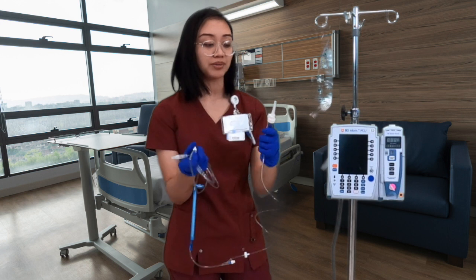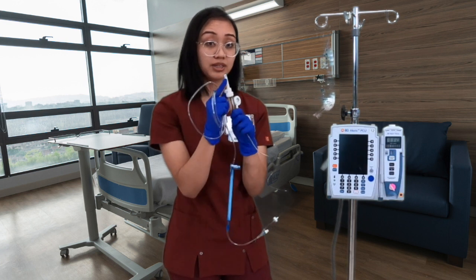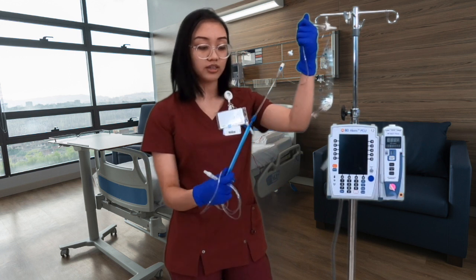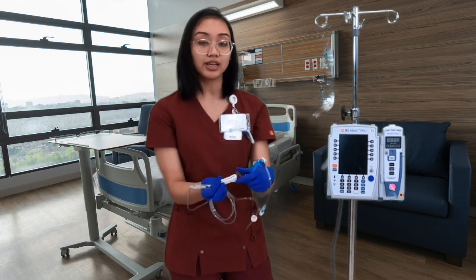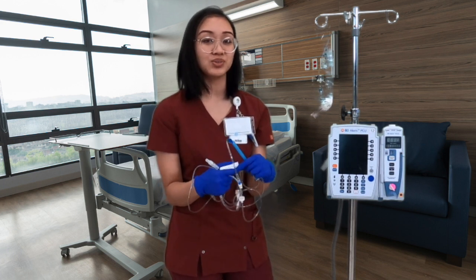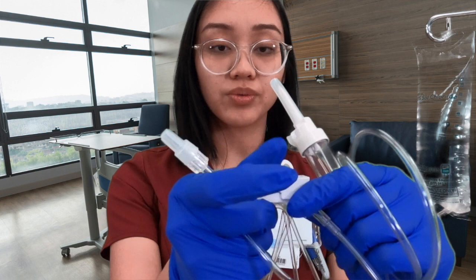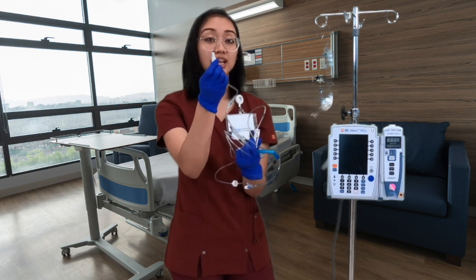Let me show you the tubing. Here we have our spike and our chamber — make sure the spike stays clean and aseptic; nothing should touch it before we spike. Then we have our tubing, and this portion goes into the pump. There's also a clamp — a key note is to always clamp your tubing shut prior to spiking the bag, or fluid will get everywhere. The thicker side is open; slide it to the right to close it. The other end is what goes to the patient — this also needs to stay aseptic.